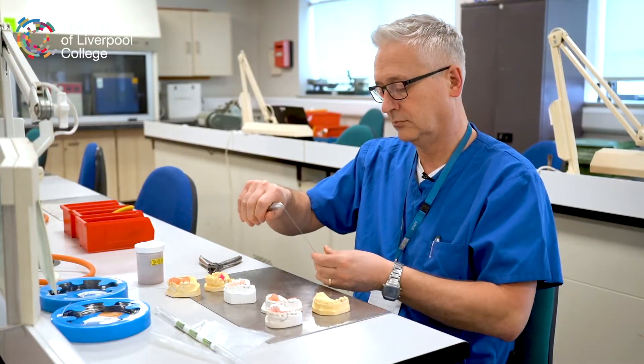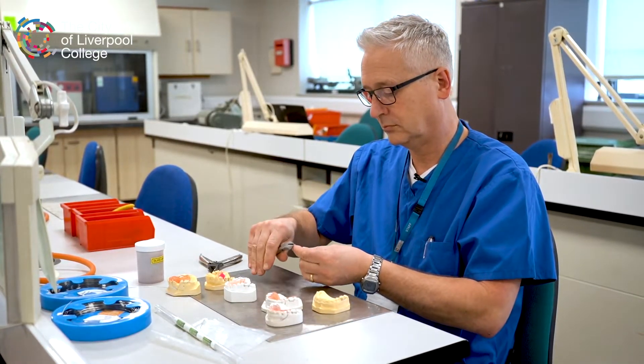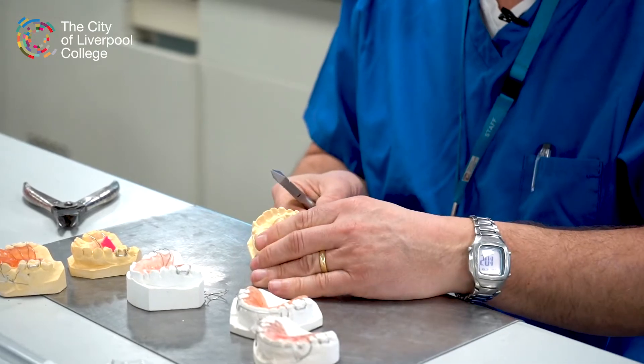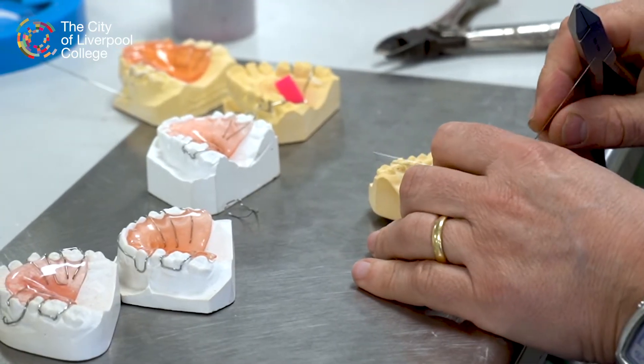For orthodontics it's a whole new set of skills — we learn how to manipulate wires so we can use those to make springs and coils, utilise screws to move teeth and hold them in position during orthodontic treatment, and then combine those skills with using acrylics to make the base plates.